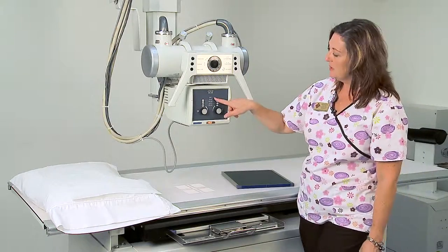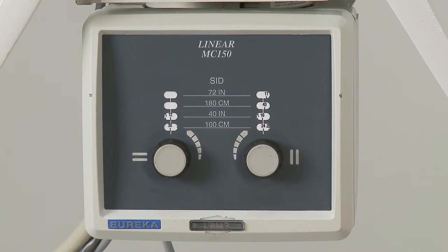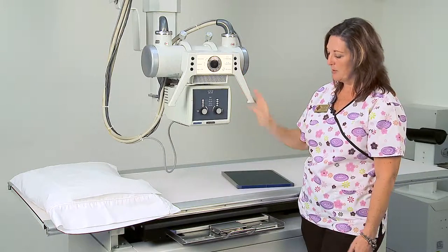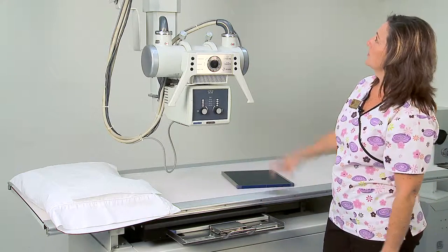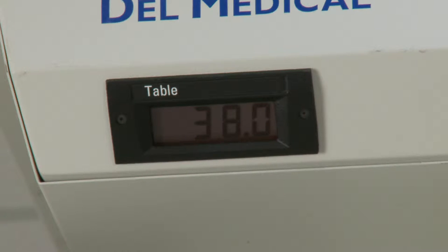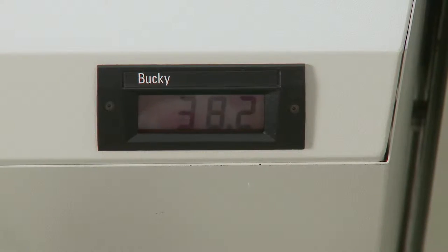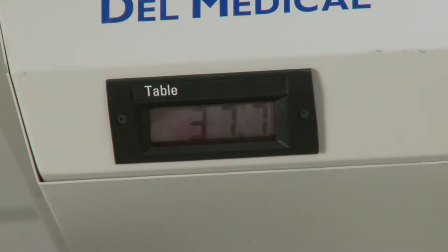It's also important to notice the numbers on your tube housing — it says SID, which stands for source to image distance. We expose all radiographic images either at a 40 inch SID or a 72 inch SID. There are two gauges located at the top part of the tube arm housing — on the right side it says bucky, on the left side it says table. So we want to go to a 40 inch SID to the bucky — this being the bucky tray — and we'll bring our tube up to about a 40 inch SID to the bucky.